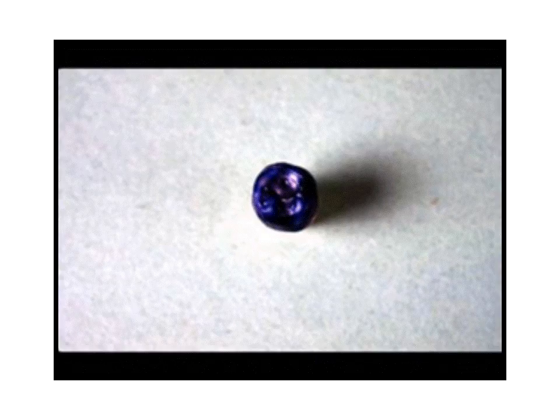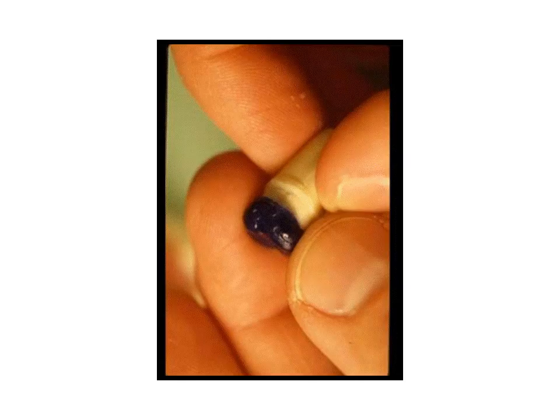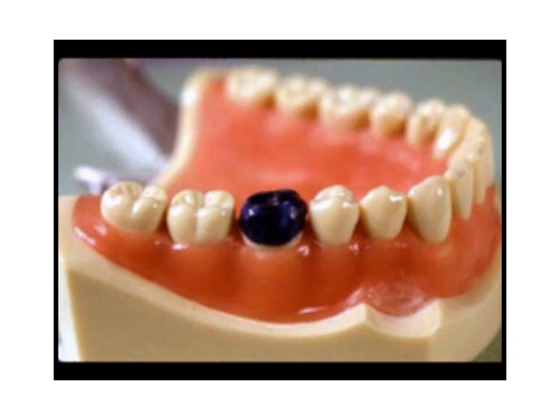Wax is added incrementally and must be hot enough to be thoroughly incorporated by remelting the previous increment. Using a warm blunt instrument, burnish or carve wax very carefully to the margin, then allow to cool. Sufficient bulk of wax must exist to prevent breakage. Carefully remove the pattern from the die — the ability to remove it before investing serious time is preferable. Inspect the internal surface of the pattern; there should be no creases or wrinkles, only perfect adaptation to the die surface.